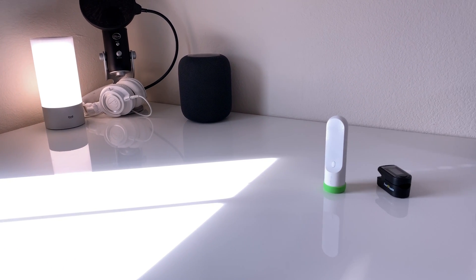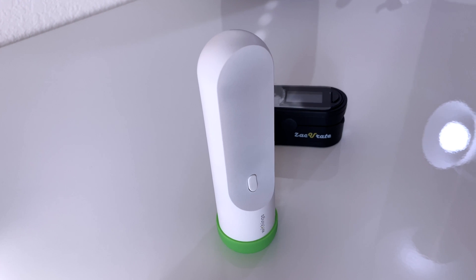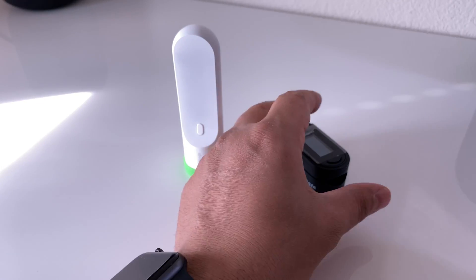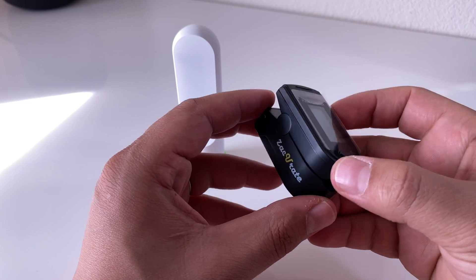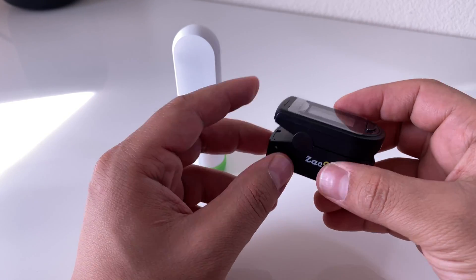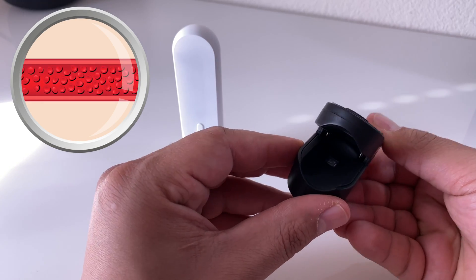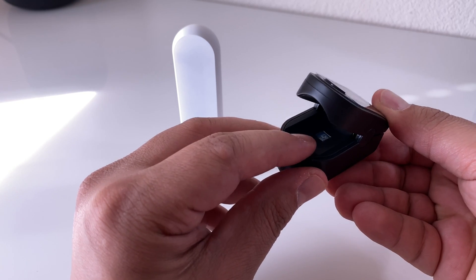Hey YouTube, hope you guys are doing well. Today I'm going to be showing you two cool devices that are very useful, especially with the coronavirus out there so we can protect ourselves. This pulse oximeter checks your blood oxygen levels using lights and optics, and it can tell you how much oxygen you have, which is really important.